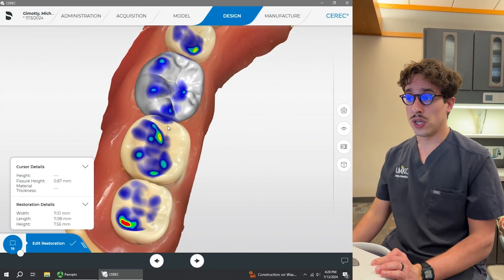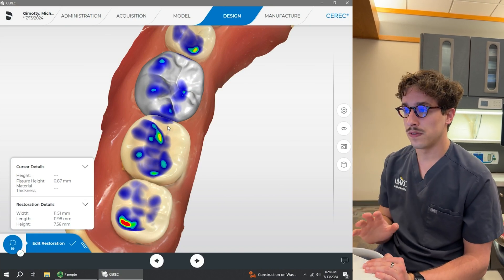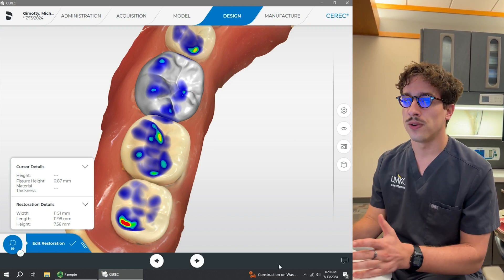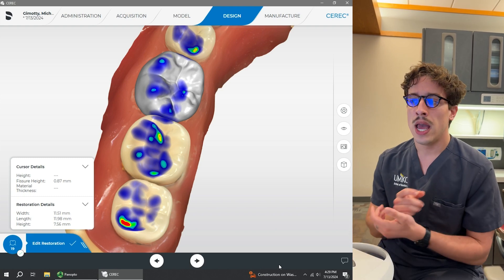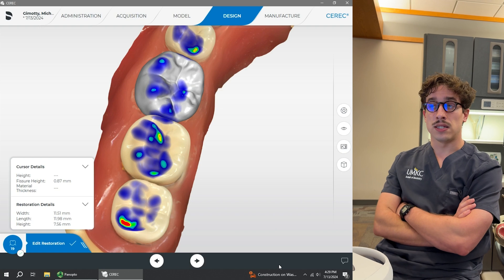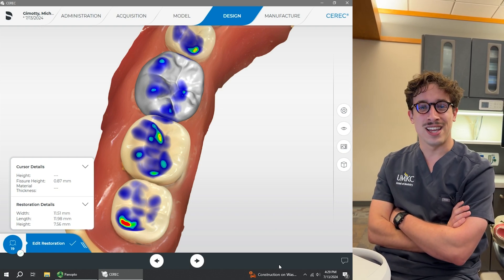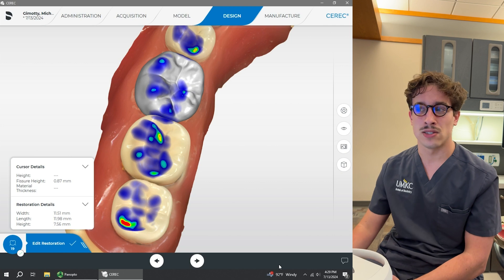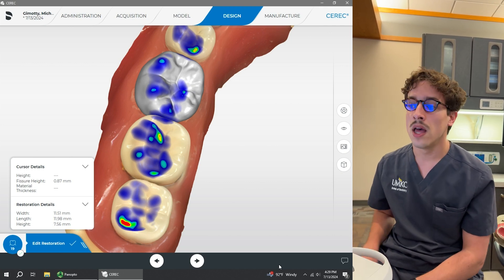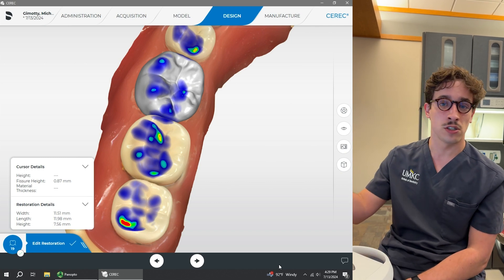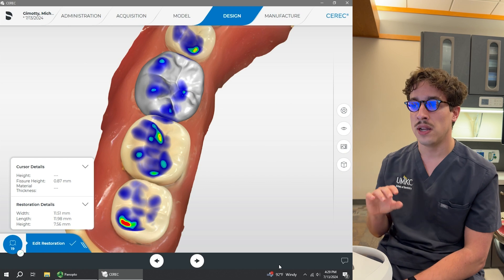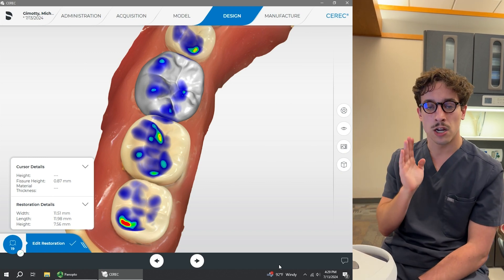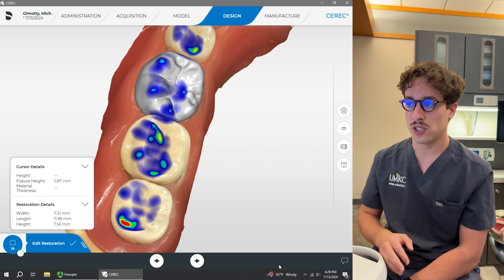I really don't use the smooth tool on the occlusal surface much at all, because this looks like beautiful anatomy that looks very natural, and I'd like to preserve that as much as possible. One thing to note: if you're doing a maxillary molar, especially a first molar, sometimes the software can generate a really defined and distinct carabelli cusp on the lingual portion. A lot of times patients will rub that with their tongue and feel like something's not supposed to be there, even though it is an anatomic feature. So I sometimes use the smooth tool to smooth out that carabelli cusp. You can also use the biogeneric variation to sometimes get rid of it.